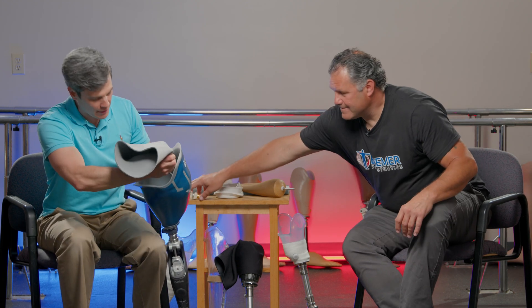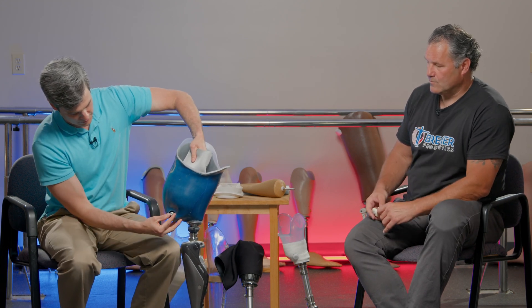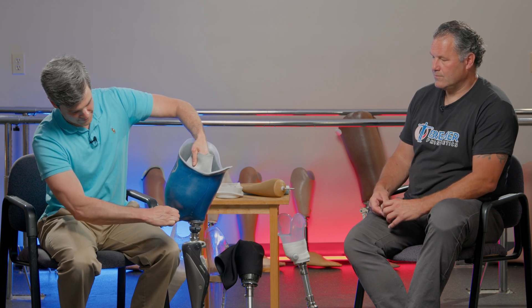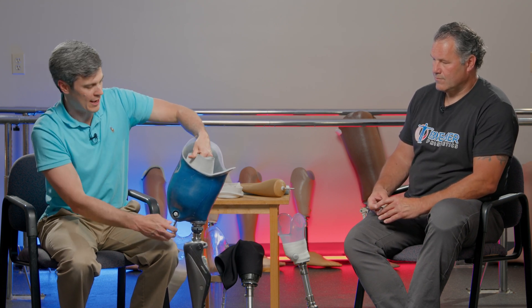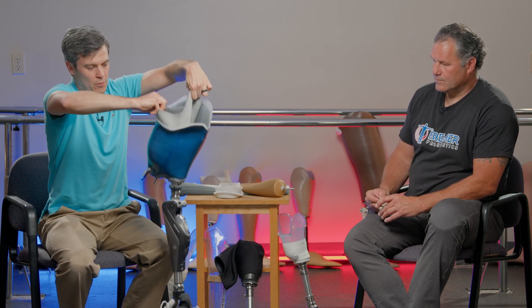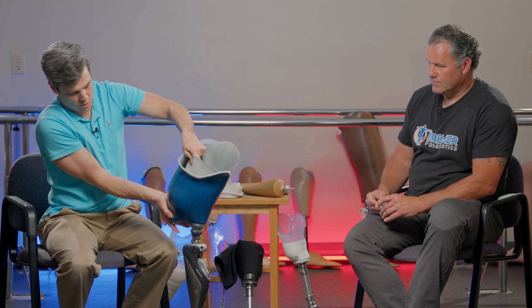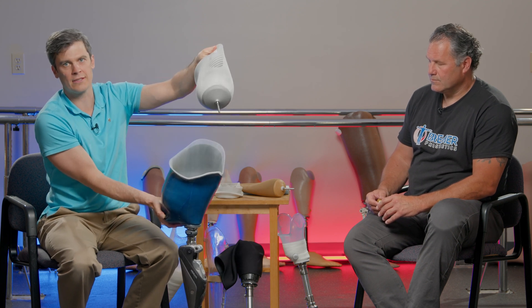Once that is in place, there's a small hole — this is called a pin locking suspension mechanism. What happens is this pin aligns with the hole in the bottom of the prosthesis. If it's a snug fit, you can even turn it in to make sure it's fully engaged. That liner provides all the suspension for the prosthesis and holds everything in place. When it's time to take it off, you push the button, hold it in, and it slips out.